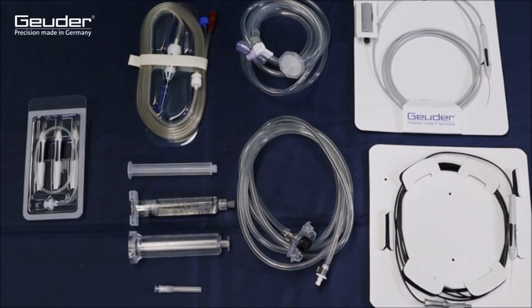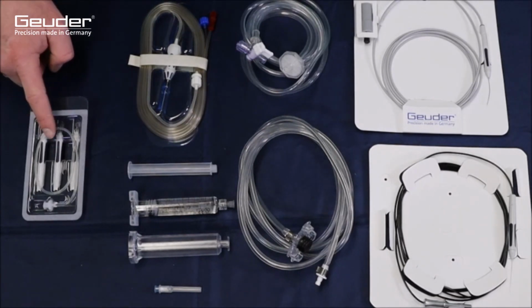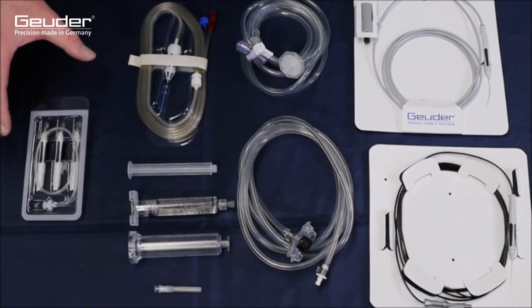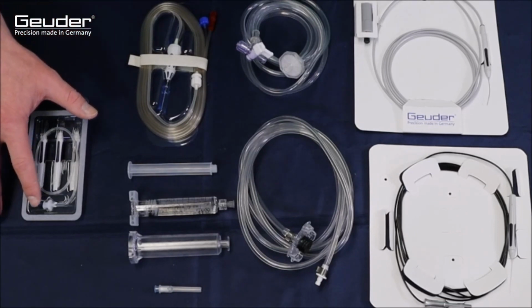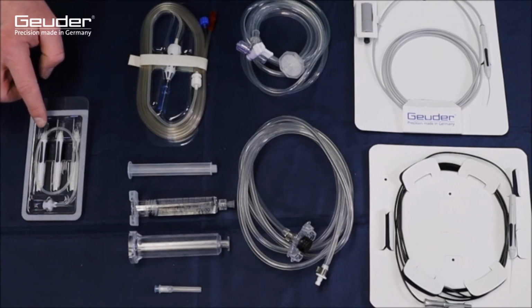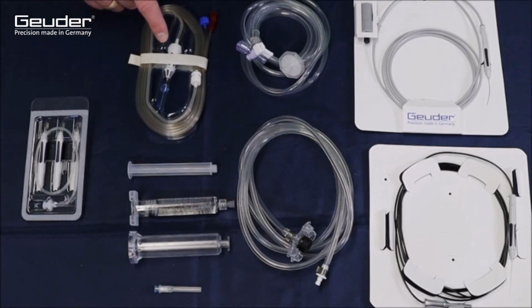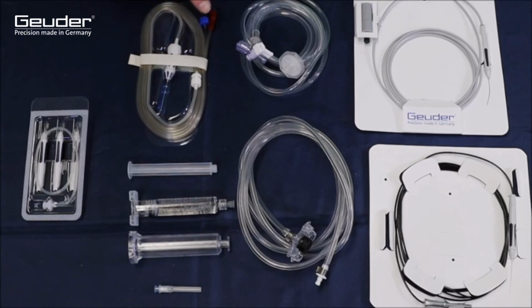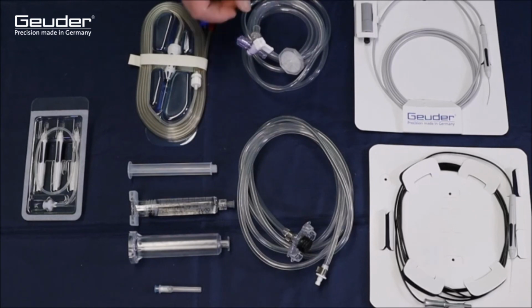We start with a general overview first. This is followed by a separate presentation of the individual accessories. Initially, the trocar set, which consists of 3 trocar lances and an injection holder. The need for 3 trocar lances in the set will be explained later in this video. The next accessory is the vitrector, which, in conjunction with the S4HPS device system, implements the actual removal of the vitreous body.